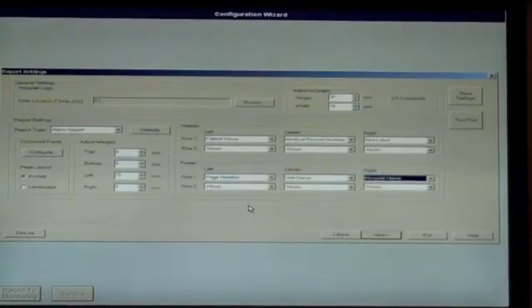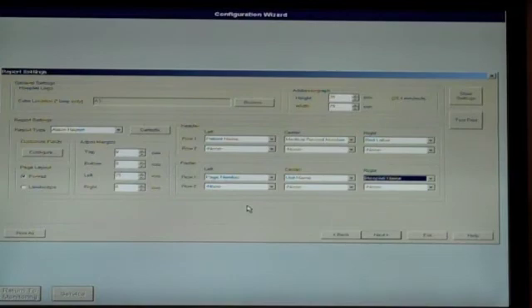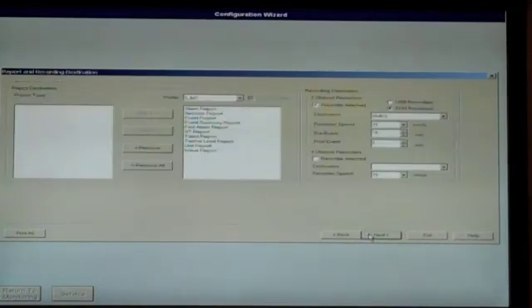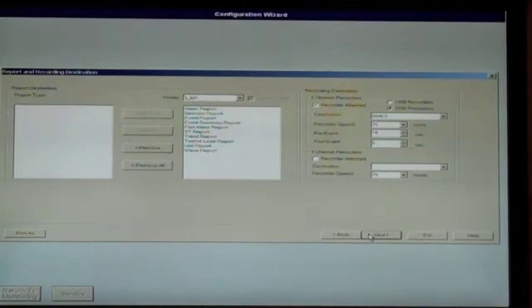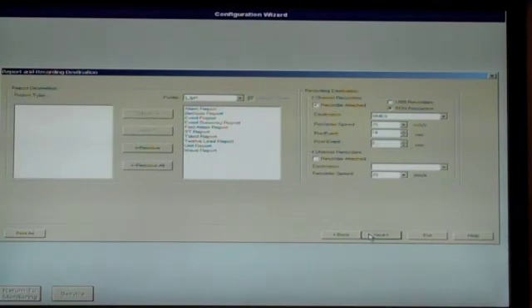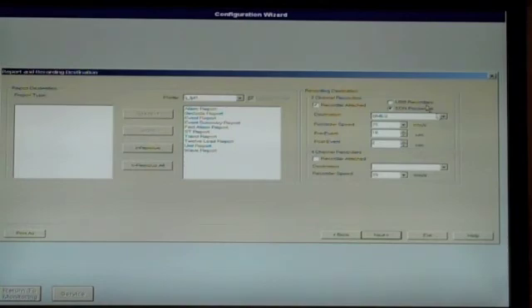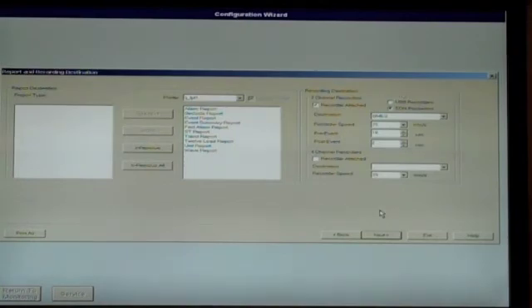Leave the report settings screen options at their default settings and click Next. On the report and recording destination screen, verify the recorder type listed in the recording destination section. Be sure it matches the type of recorder your system has. If it does not, select the proper type and then click Next to continue.